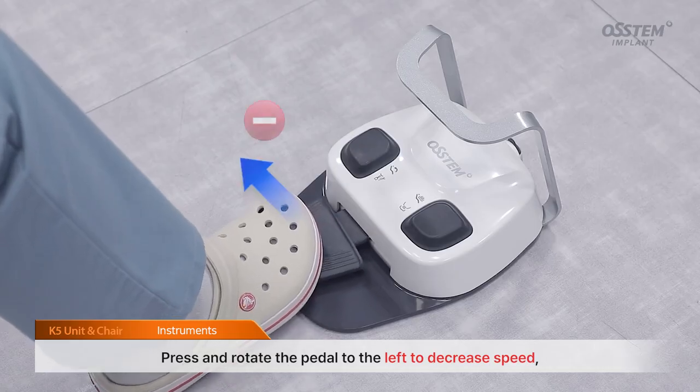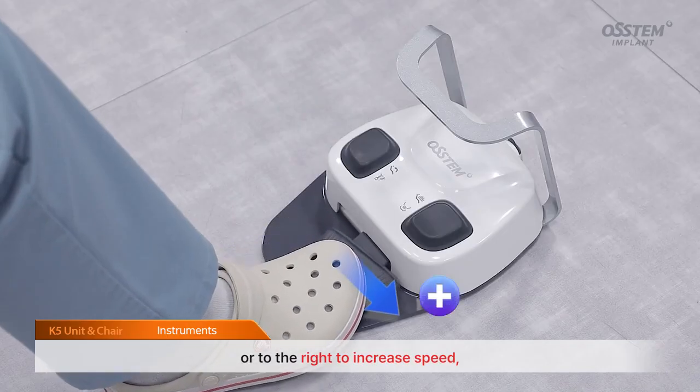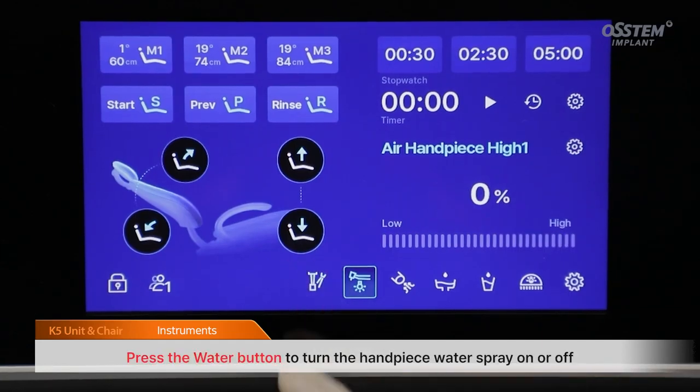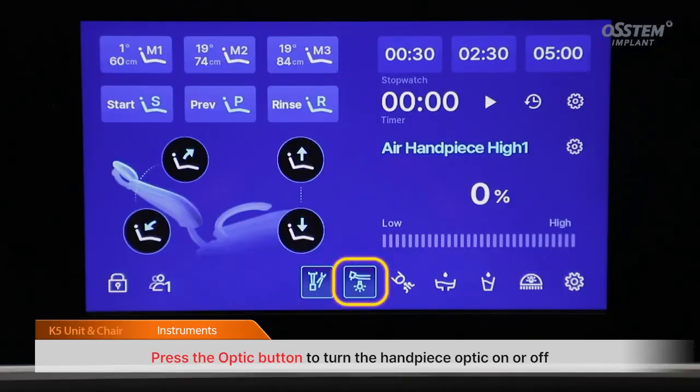Press and rotate the pedal to the left to decrease speed, or to the right to increase speed, allowing you to adjust the handpiece power as needed. Press the water button to turn the handpiece water spray on or off. Press the optic button to turn the handpiece optic on or off.